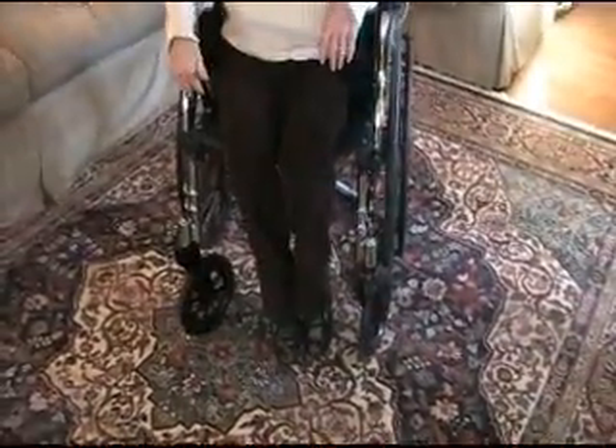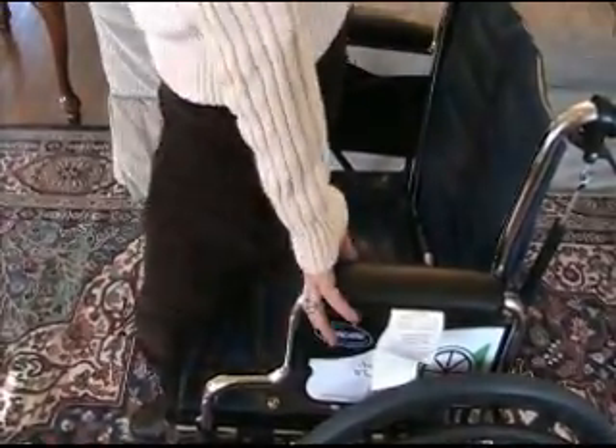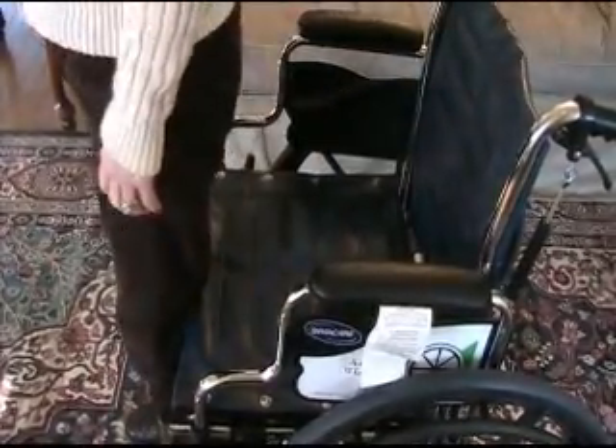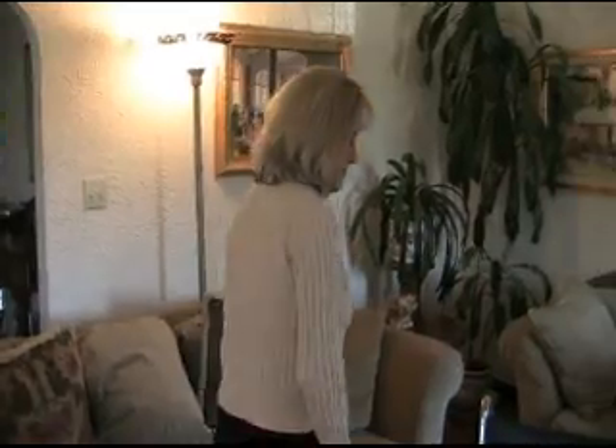So when you have pressure put on to the seating part of the wheelchair — when they sit down, they're moving along, and they want to stop — the wheelchair automatically knows when the pressure from the seat goes up. It clicks, goes back, and just stops; it doesn't go back more than maybe a quarter of an inch at the most. That is what we're talking about when we talk about fall prevention, which we all know you don't want people to have.